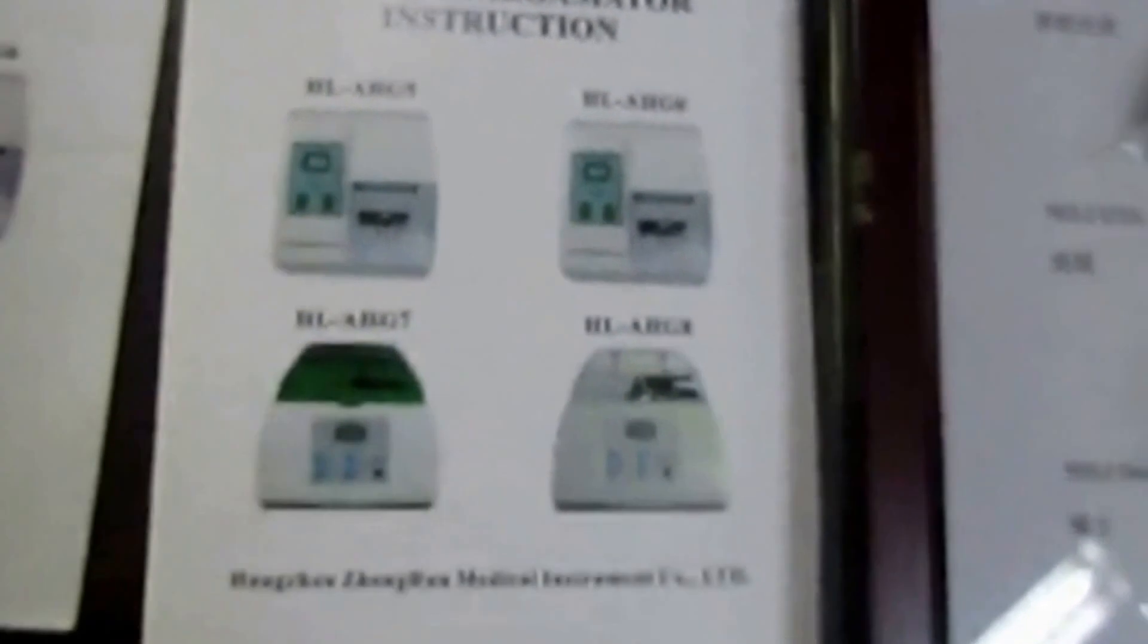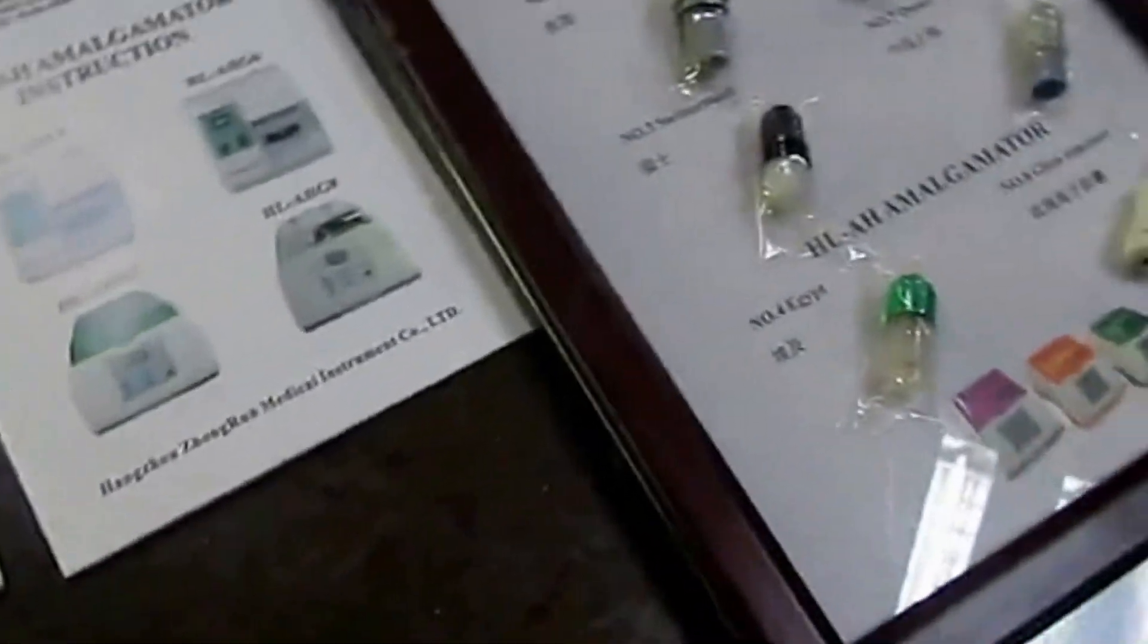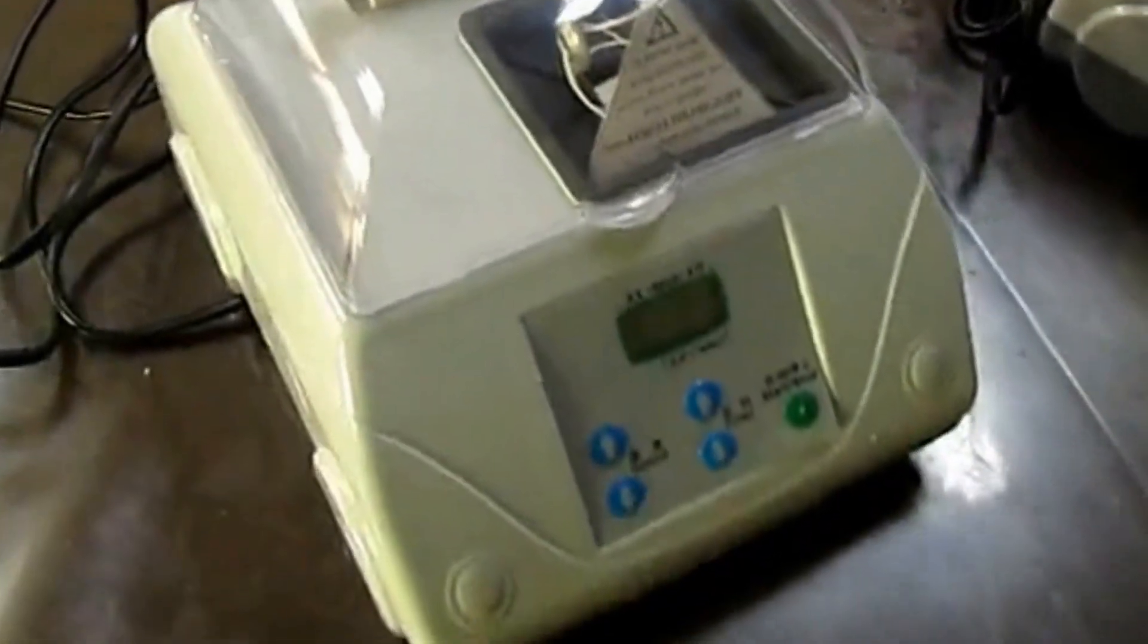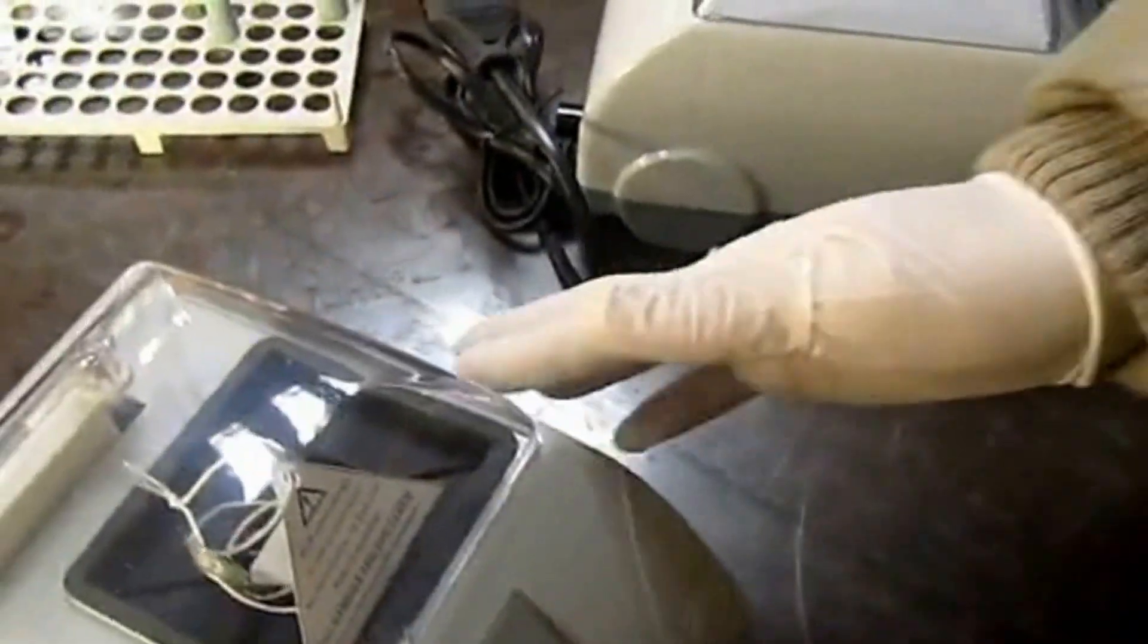You must read the instructions carefully before using the device to ensure safe and proper operation. Make sure to keep the instructions near the device so they can be read at any time. Before using, please read the warning card.